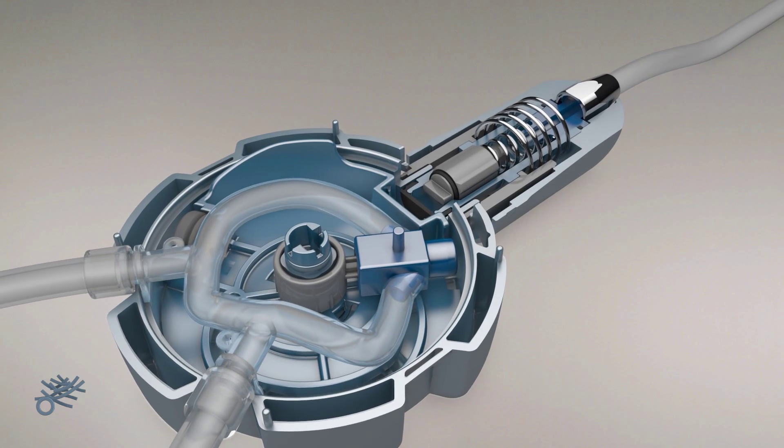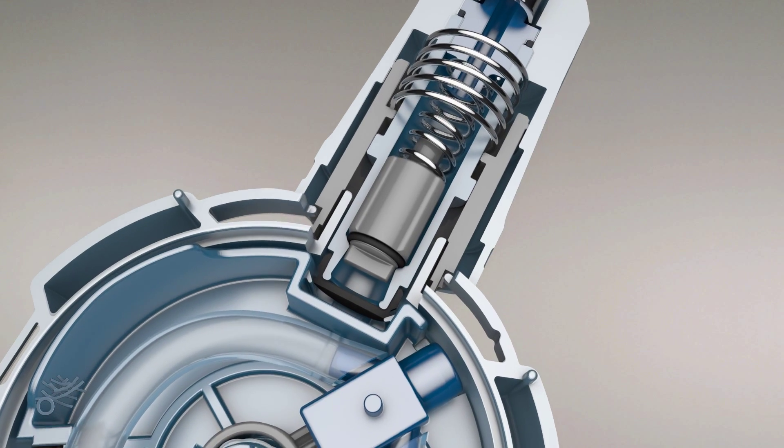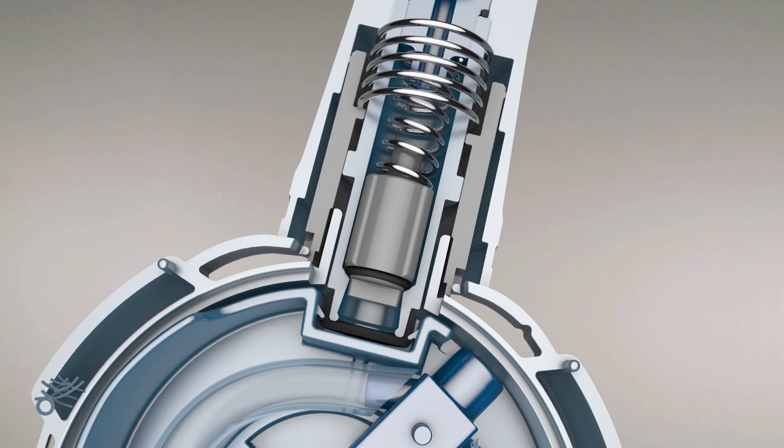Pushing the patient set towards the disposable unit removes the cap from the patient set and secures it firmly in place on the disposable unit housing.